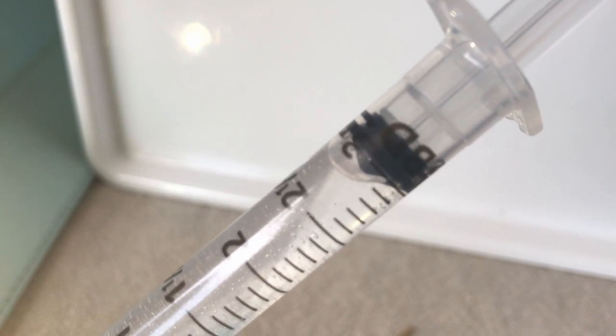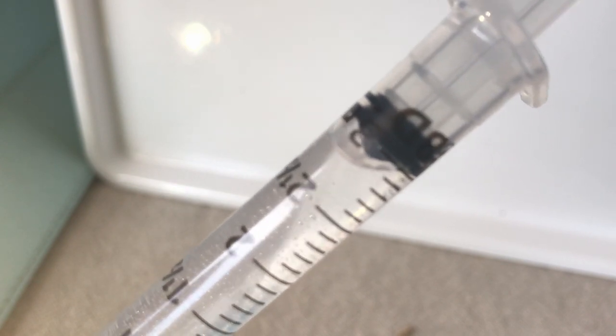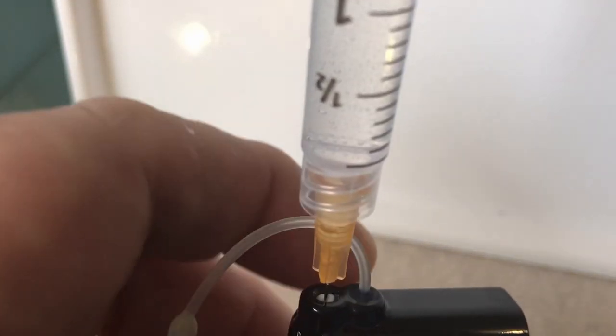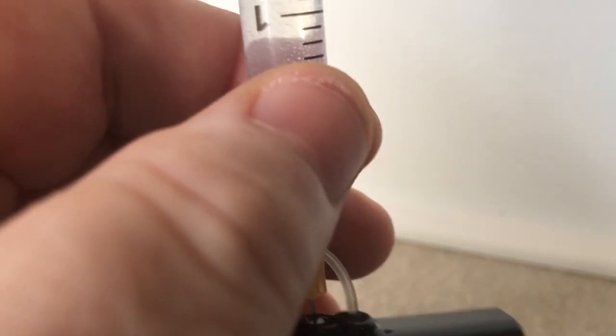There's always a bit of a handshake and you can see that bubble up the top there. What Tandem recommends is to pull the needle out and invert the syringe and push the air out. Now you can either do that back into the vial or a pen fill, you know, the three mil pen cartridges that some people use. I don't do anything here. I just continue. Because what happens is that when we - you can flick. And again, this is hard keeping everything in front of the camera.